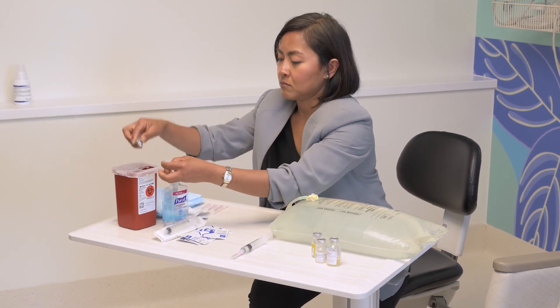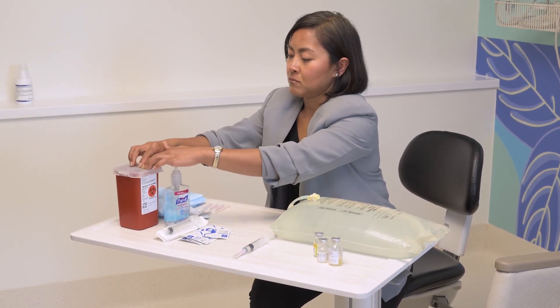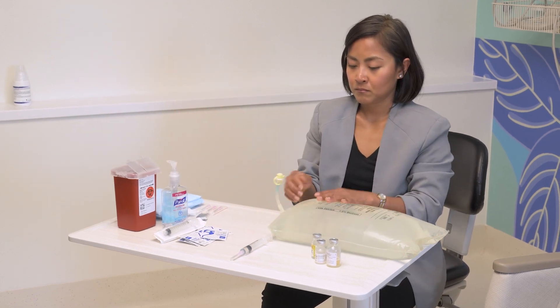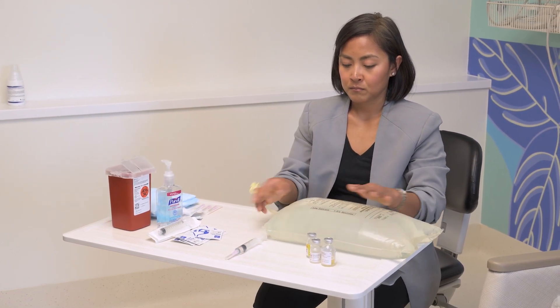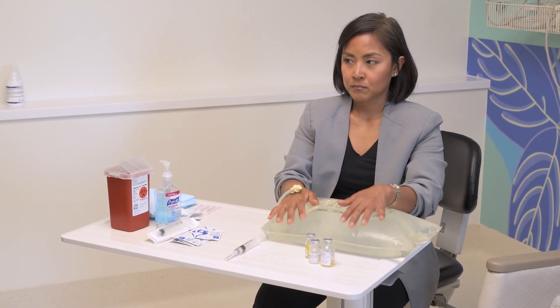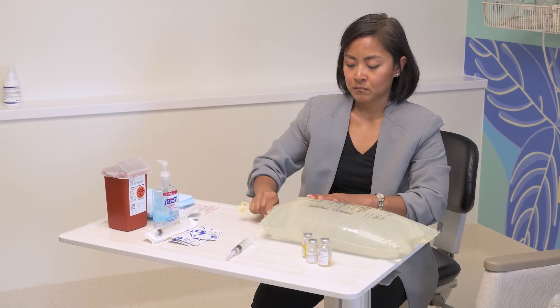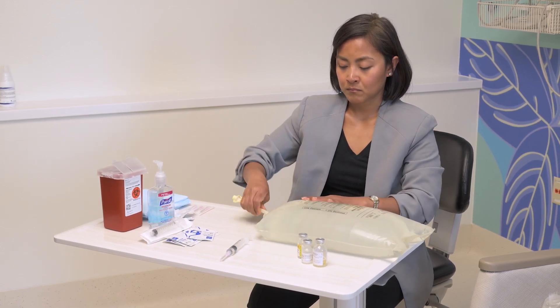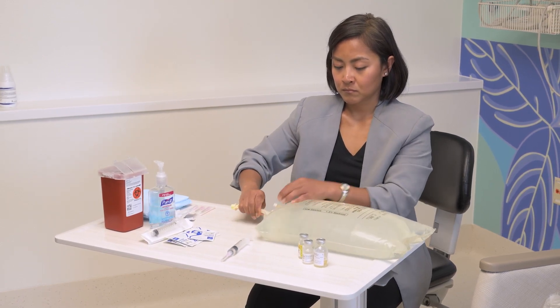Use a separate new syringe for each antibiotic medicine for each bag of dialysate. For example, if you are using five bags, you will need five syringes — one for each bag's dose of antibiotic.